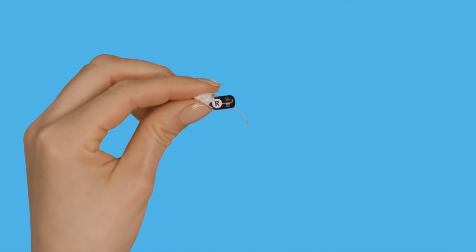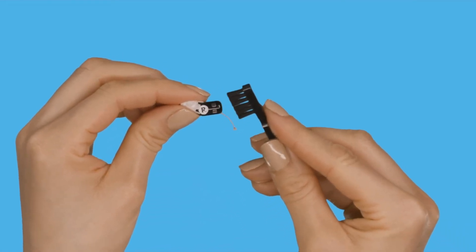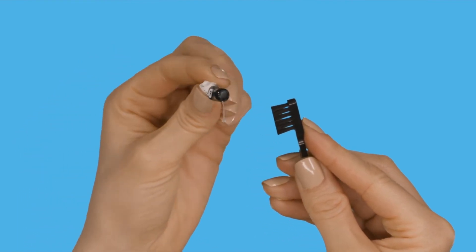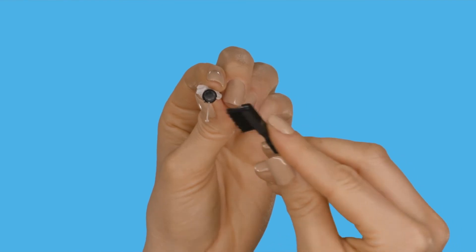Hold the device as you would naturally in a horizontal position. Clean the microphone area by brushing all around it. This keeps wax from blocking the openings where sound enters the device.